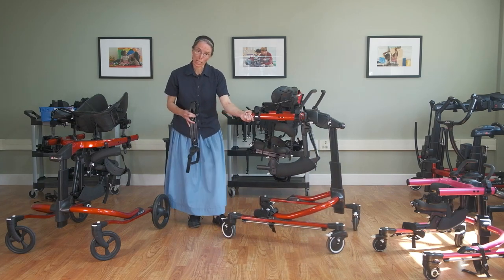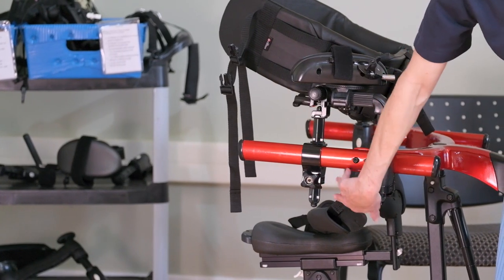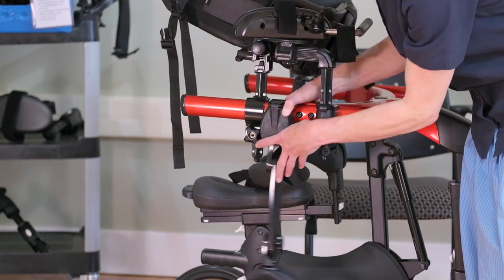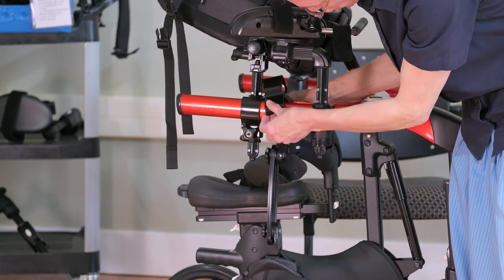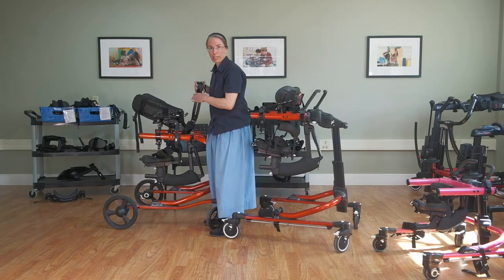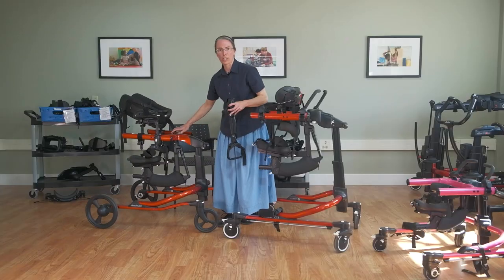The nice thing about the chest pad is that there's no protruding upright. Sometimes the chest front upright will protrude below the frame, and in that case you would want to make sure the thigh prompt is on the opposite side so you're not getting a collision — unless you intentionally want the chest prompt to stop the movement of the thigh prompt. To get it to swing freely, have it on the inside of the frame. It can be a bit of a juggle to make sure you have room for everything, but mostly you can get it to work.